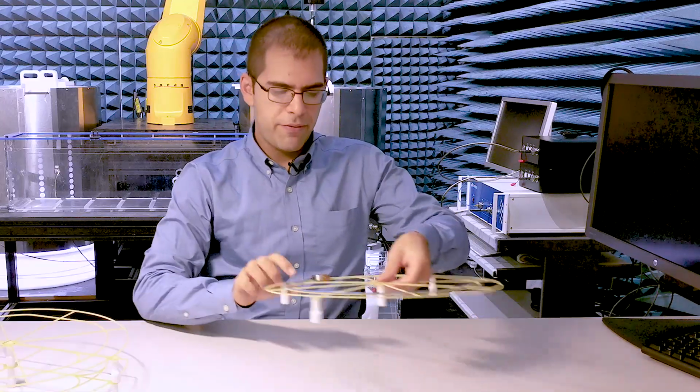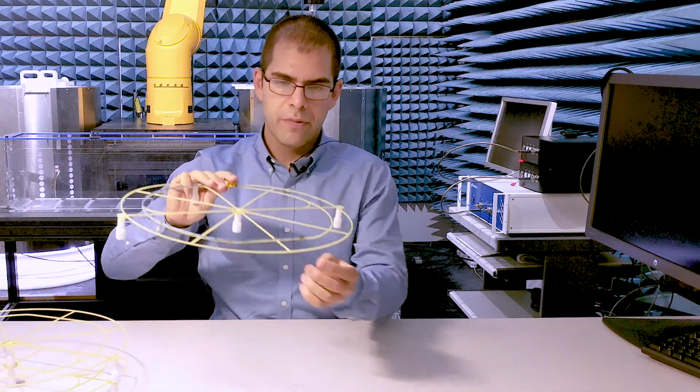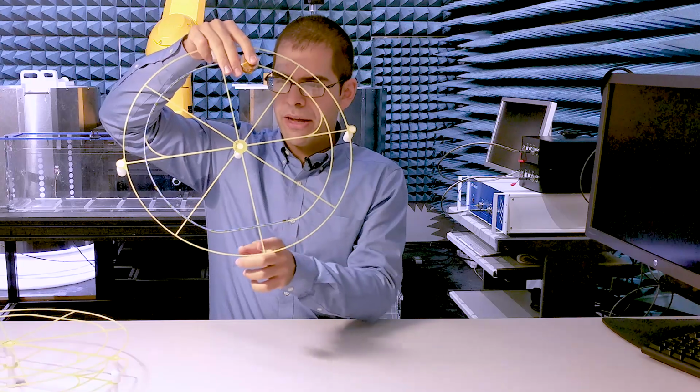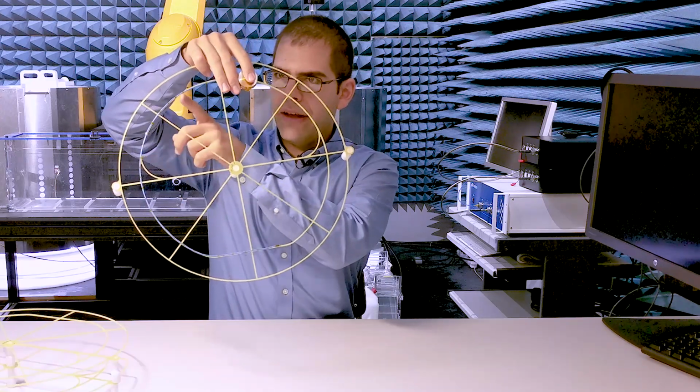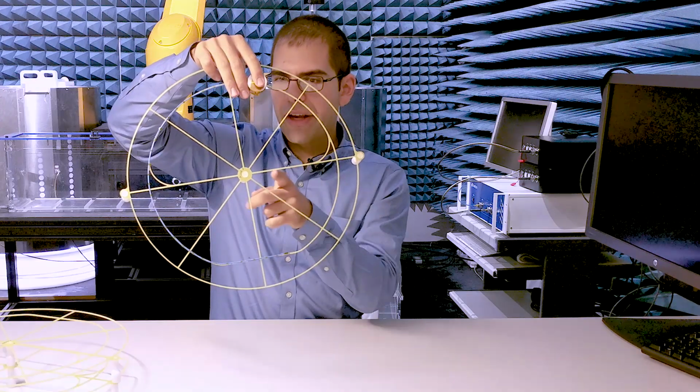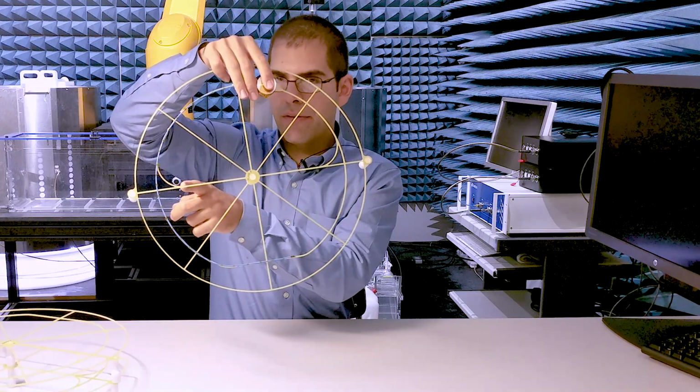For this video, I've affixed the implant along the E-shaped routing. You start with the tip at this defined point here, and then you route the implant around as long as it takes until you get to the can. You can accommodate a system up to 110 centimeters in length by using the whole length of the routing.